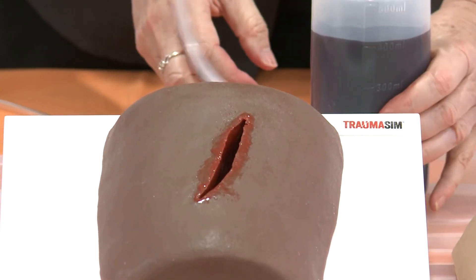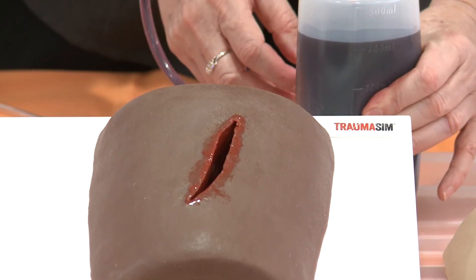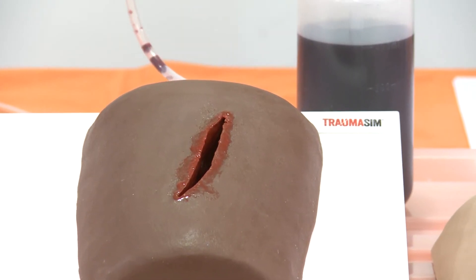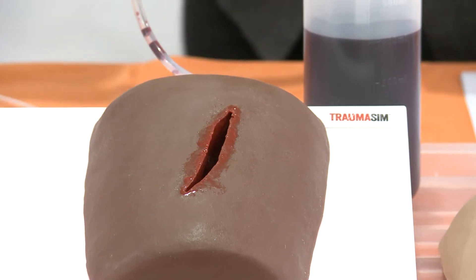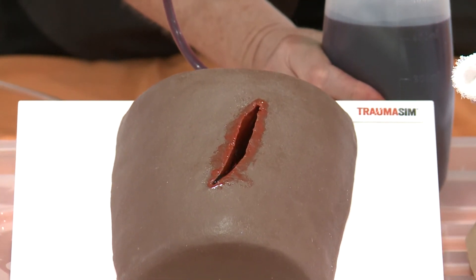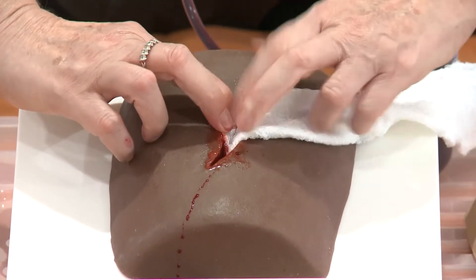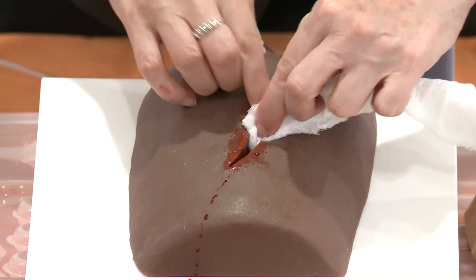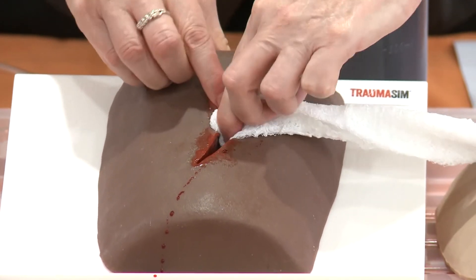These ones we just provide with a little squeeze bottle instead of the syringe — that's really the only difference. And then you can do exactly the same thing with them. You can make him bleed, get in there, stretch the wound open, have a good look, take anything out that you need to take out, and then jam your fingers in there.